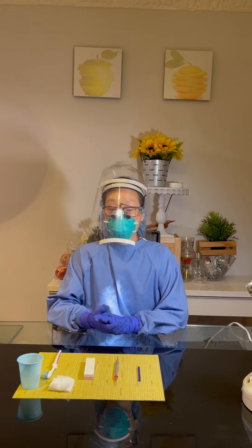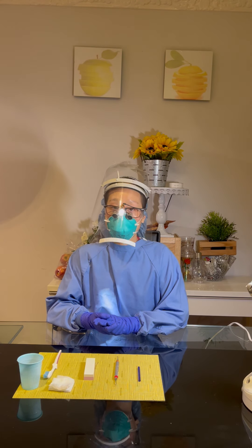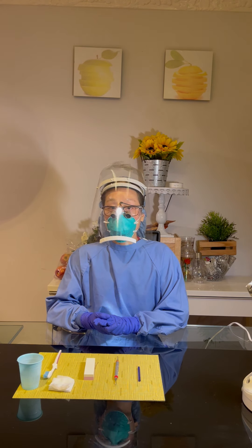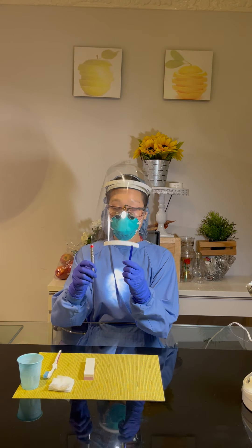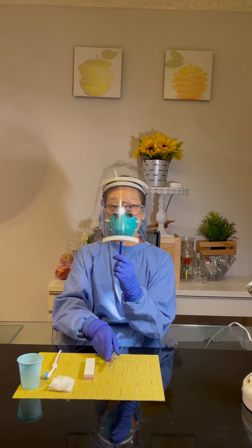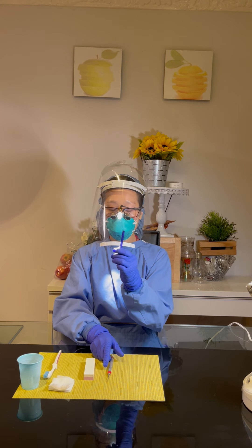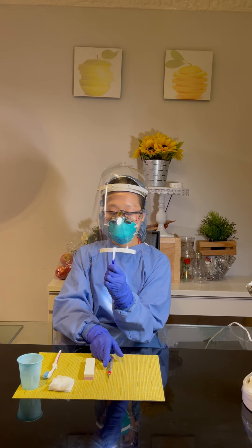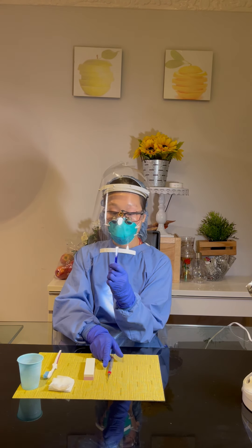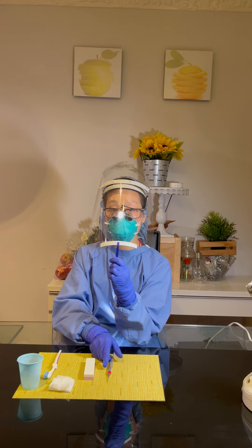With all of this armamentarium, I can go ahead to do the sharpening. But before I sharpen the instrument, I have to test the sharpness of the instrument first. I'm going to use the test stick and the instrument. I will use my non-dominant hand to hold the test stick, using my thumb and index to hold it at the bottom third of the stick, placed at the 12 o'clock position, and then I will staple my non-dominant hand on the table countertop.